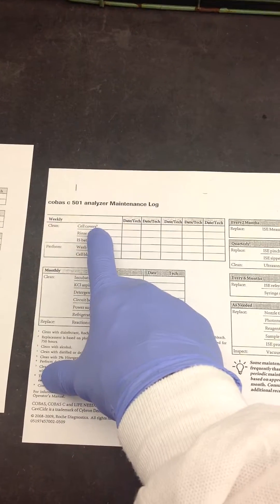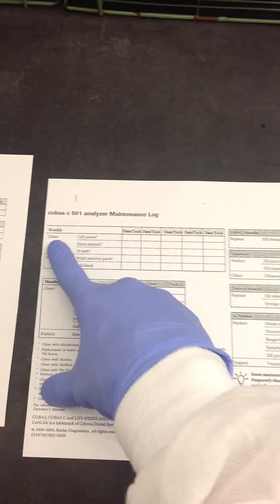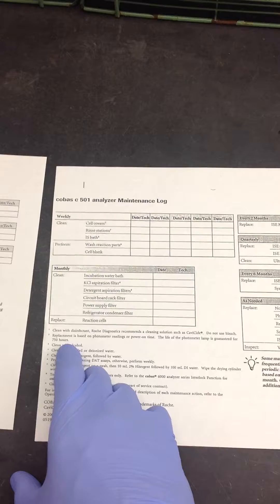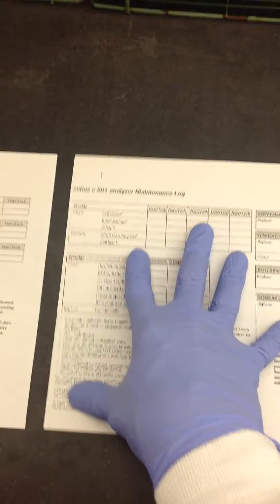If you forget any steps or the things you're supposed to use, each of the cell covers will have a number at the top of it — like number 3 — and if you go down to the instructional area, it says that number 3 is to clean with alcohol. So it reminds you what you're supposed to use, whether it's DI water, alcohol, or whatever.